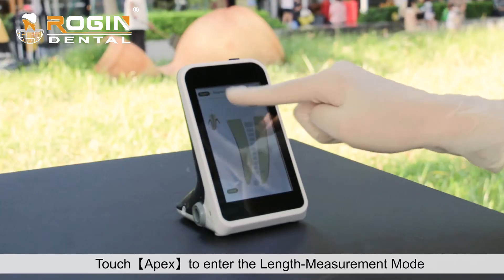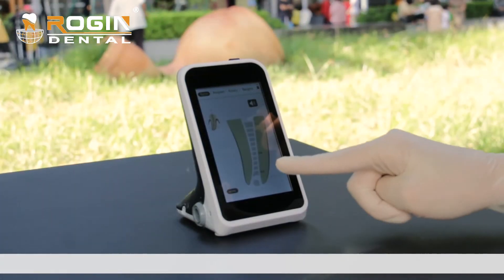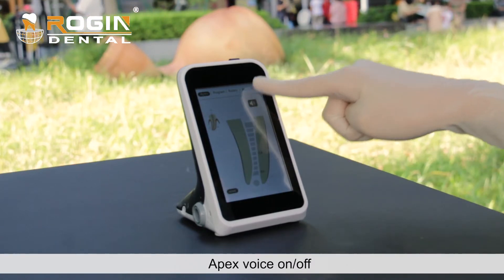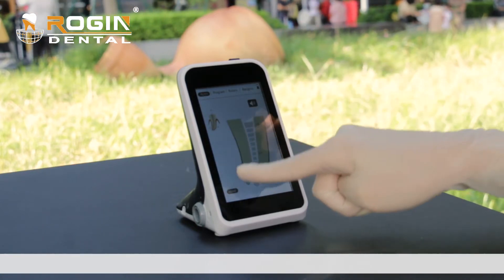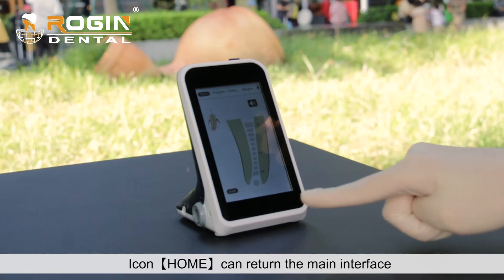Touch Apex to enter the length measurement mode. Apex voice can be turned on or off. Touch the Home icon to return to the main interface.